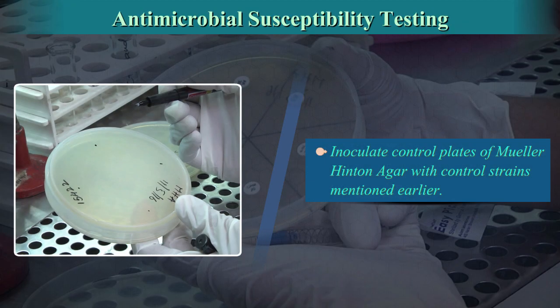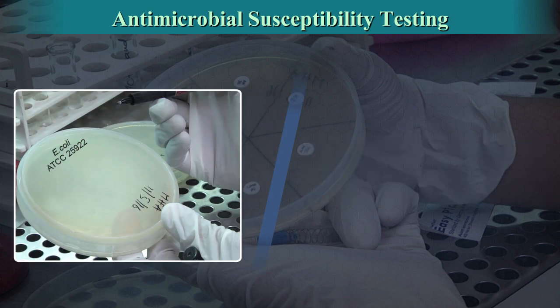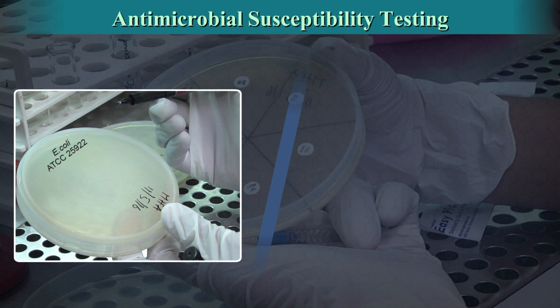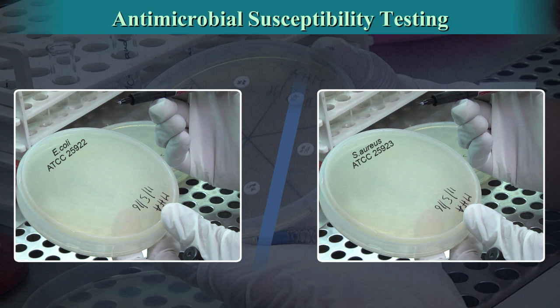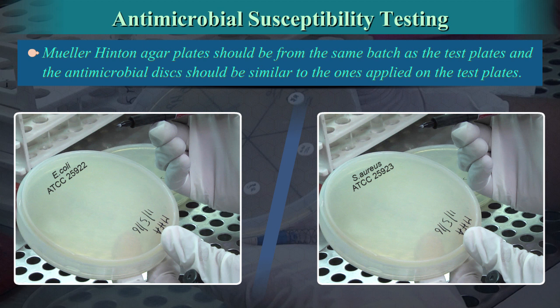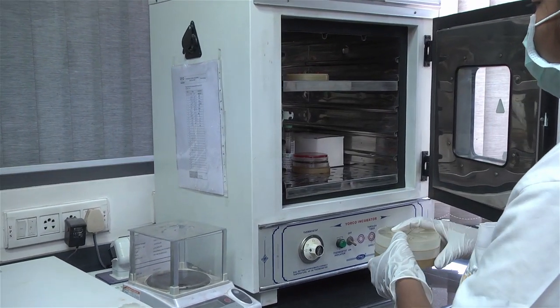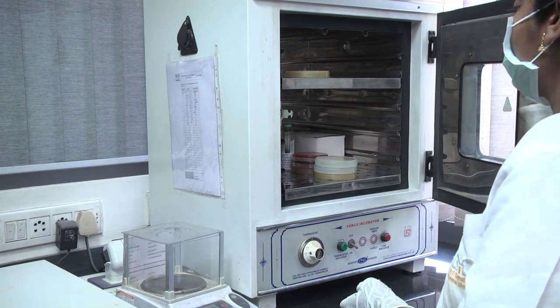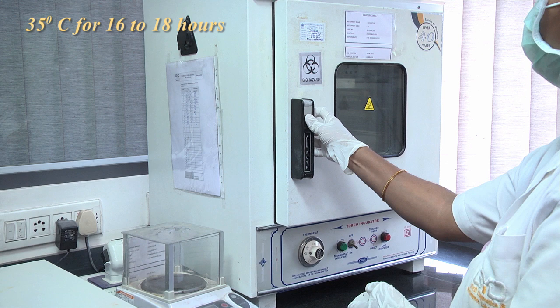Inoculate control plates of Mueller-Hinton agar with control strains: E. coli ATCC 25922 for gram-negative bacteria and Staph aureus ATCC 25923 for gram-positive bacteria. The Mueller-Hinton agar plates should be from the same batch as the test plates, and the antimicrobial discs should be similar to those applied on the test plates. Within 30 minutes of applying the discs, invert the control and test plates and incubate aerobically at 35 degrees centigrade for 16 to 18 hours.